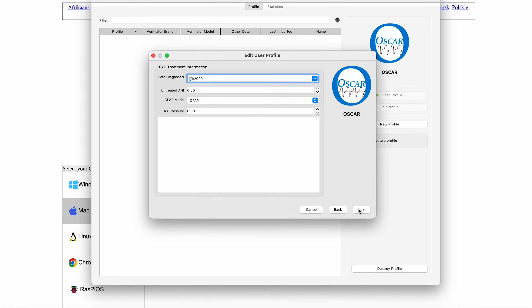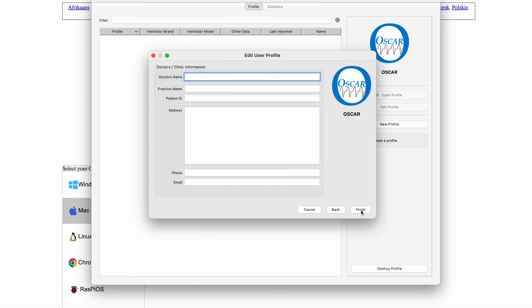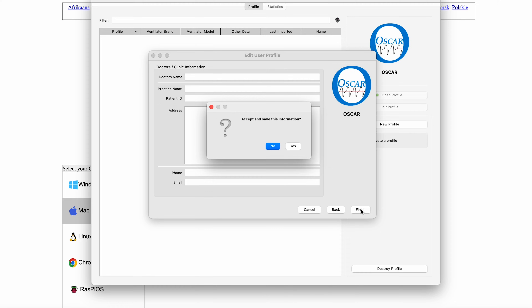The following screen asks about your treatment and some therapy settings. If you know this info, you can fill it out. But when you upload your data, Oscar should be able to automatically detect this anyway and fill it in for you, so don't worry about it too much at this stage. You can always manually add it later if you need to. Hit Next. Finally, it asks you for your doctor's information, which, like your personal information, is optional and will not affect the data you see. After this, the button to click will be Finished. And now you have a shiny new Oscar profile.